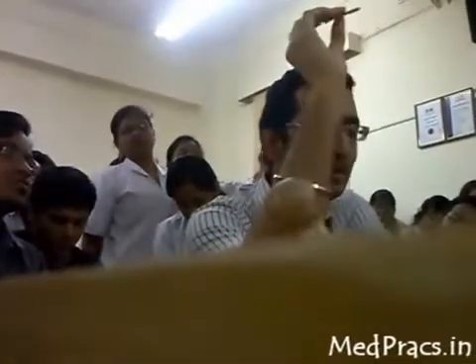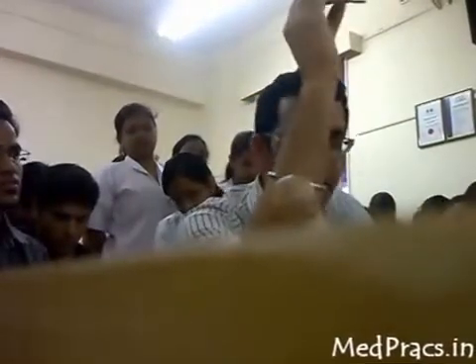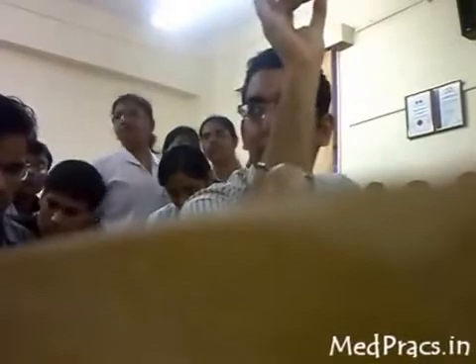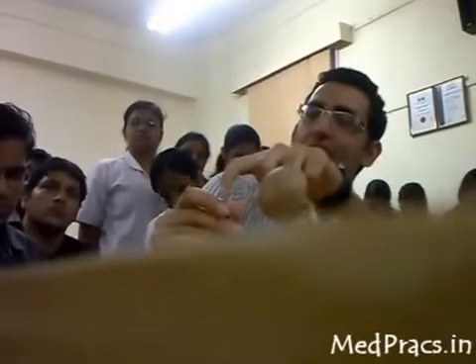This is a cannulated screw — cannulated versus non-cannulated. The use of cannulation is that a guide wire is passed through it, so the screw is directed to the proper position as desired and will not deviate. Screw types include: cannulated/non-cannulated and partially threaded/fully threaded.